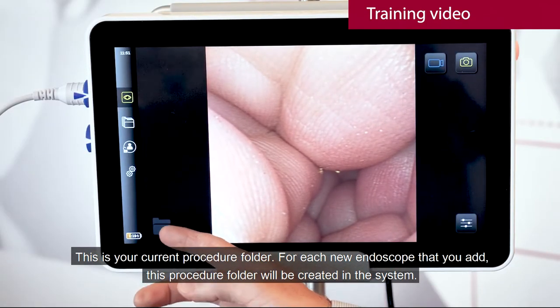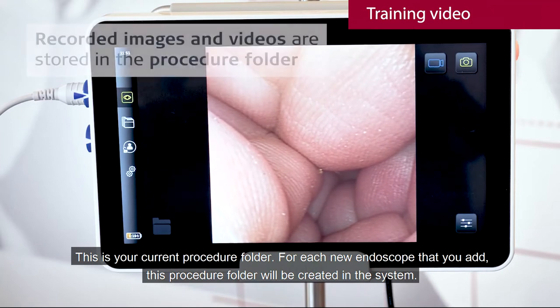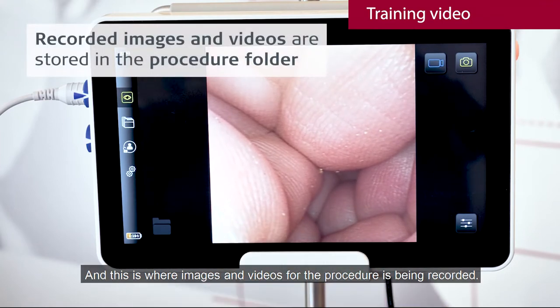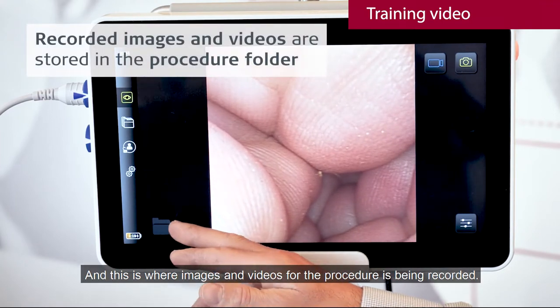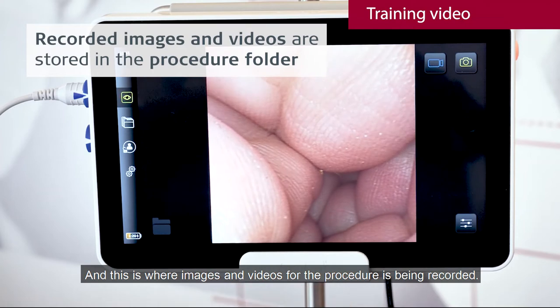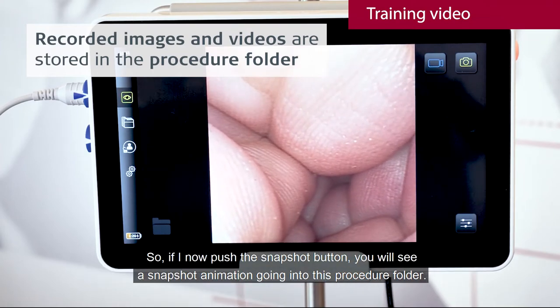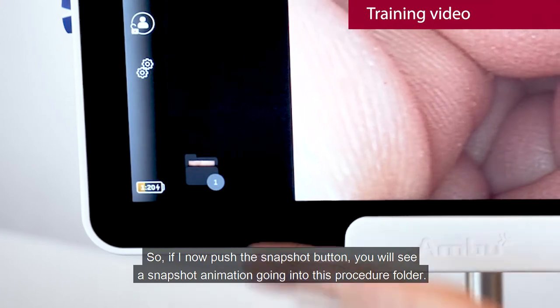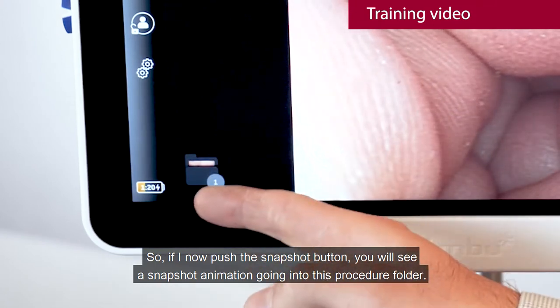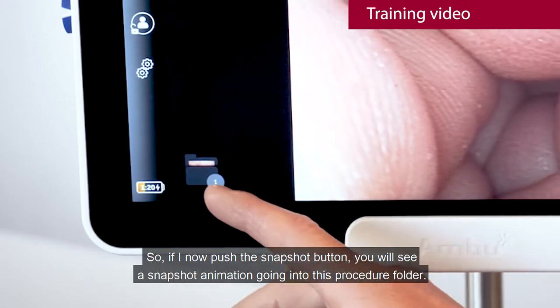This procedure folder will be created in the system and this is where images and videos for the procedure are being recorded. So if I now push the snapshot button, you will see a snapshot animated going into this procedure folder.